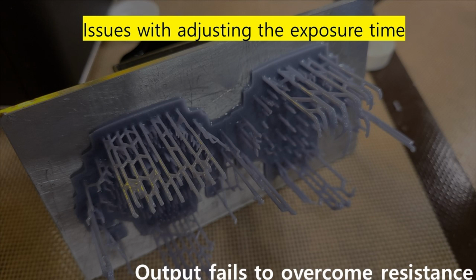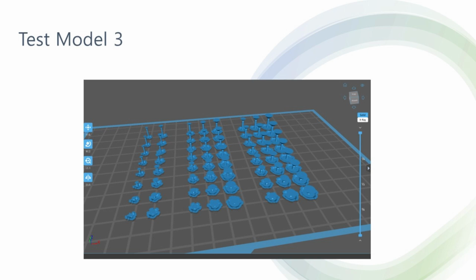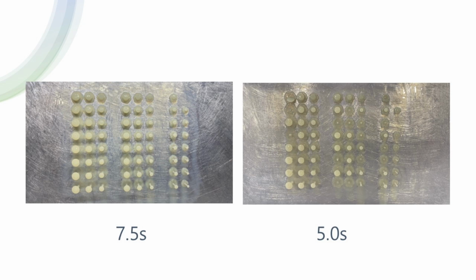Specifically, too short an exposure time can prevent sufficient curing of the resin, negatively impacting the strength and durability of the printed crown. This image showcases an experiment in which various thicknesses of pillars and structures with different loads were printed using different exposure times in 3D printing. The purpose of this experiment was to investigate how exposure time affects the stability and integrity of 3D printed objects.